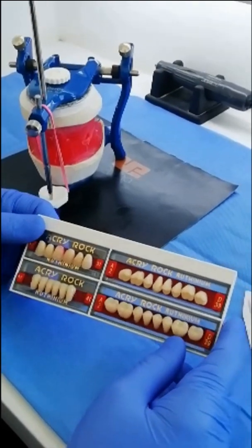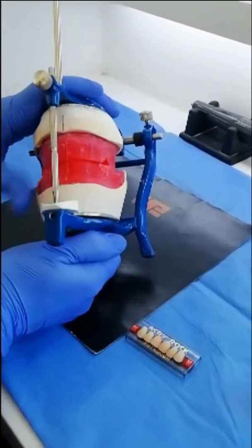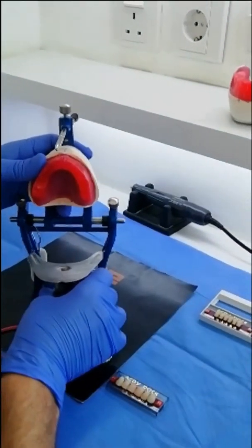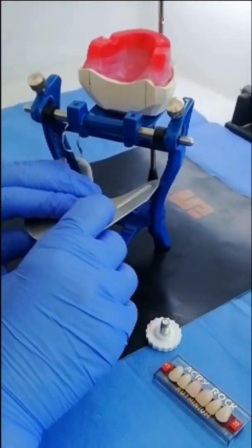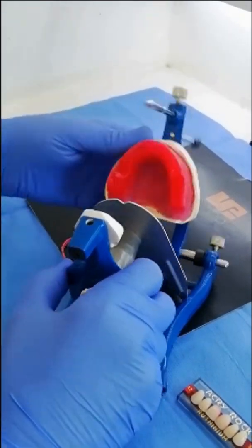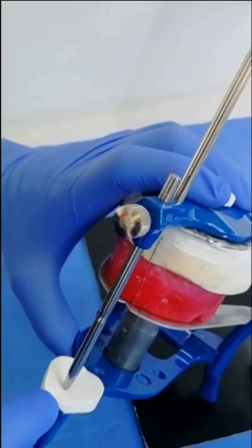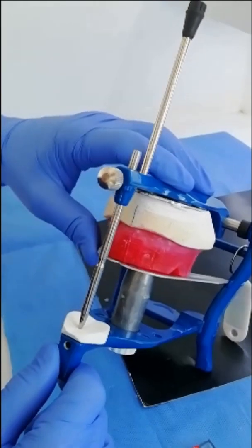We start the arrangement by replacing the lower cast with the occlusal table. We open the articulator, move the lower cast, and put the occlusal table instead. The occlusal table must be positioned correctly, making sure that the zero line is flushed with the upper surface of the upper member and the tip of the incisal guidance pin is touching the incisal guidance.